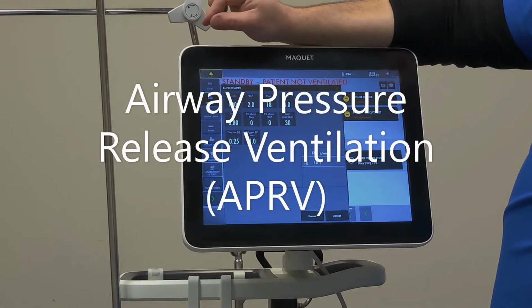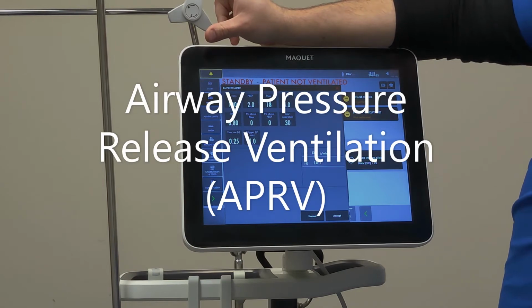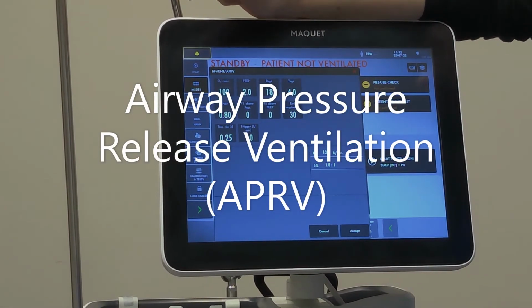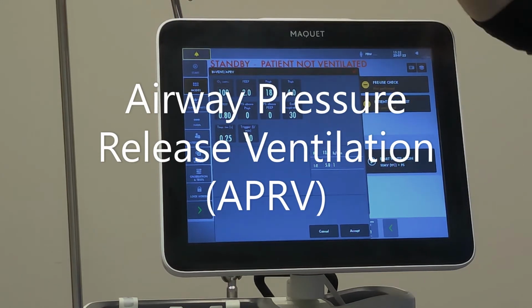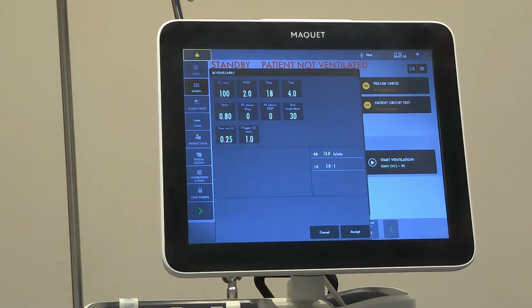Okay, the final pressure mode we're going to go over is APRV. It is quite a bit different from the other modes. Now, APRV you're going to use more when you need to achieve better oxygenation with the patient. This mode typically will allow for some permissive hypercapnia. The idea of the mode is to keep the lungs inflated as much as possible.